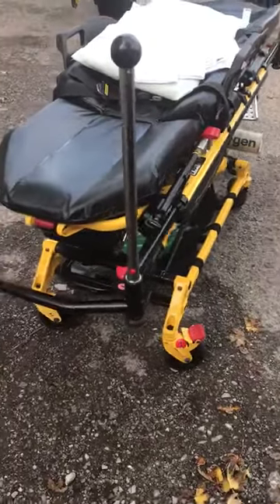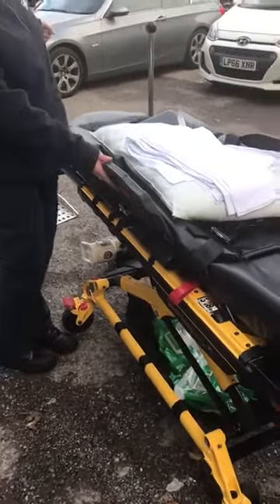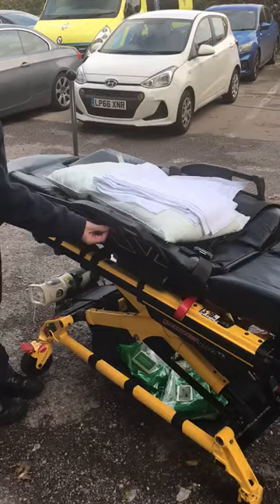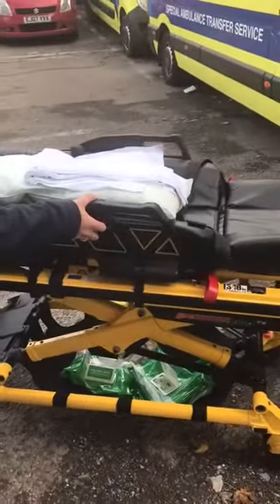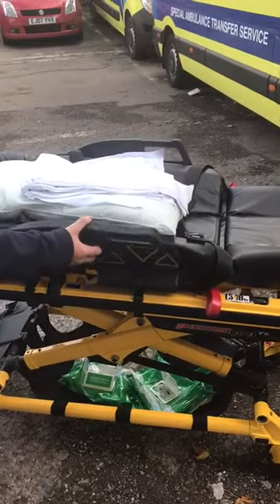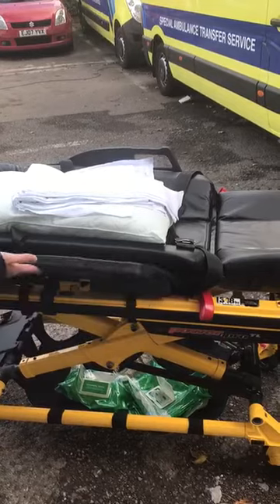To release the brakes again, just click them off — that side as well. To put the side down when you're transferring the patient over, you've got a red thing here, so you need to press that in. You need to push the side forward towards the stretcher, and then release it back again. And when you want the sides up at the end, they just click into place.